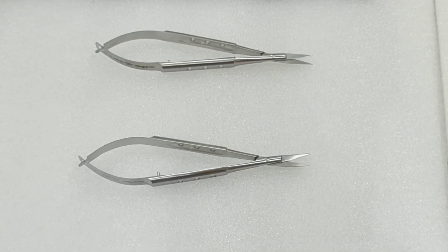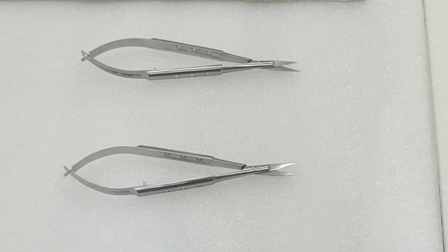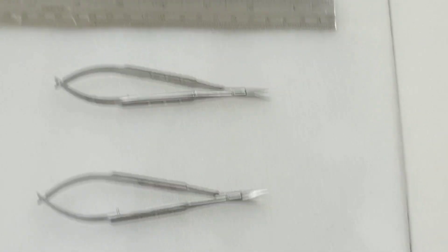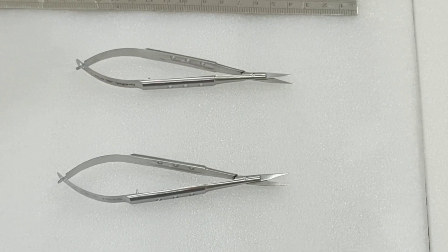One is straight and the other one is curved. The model of the straight is S32 and the model of curved is S33.